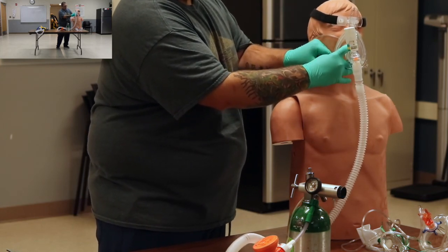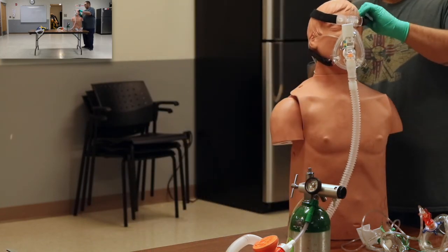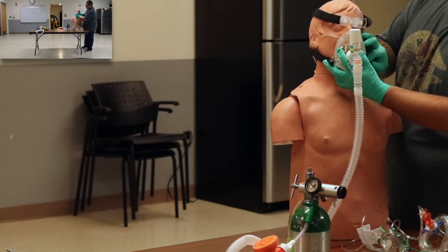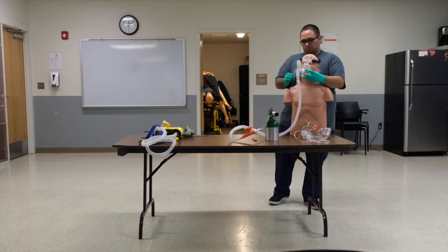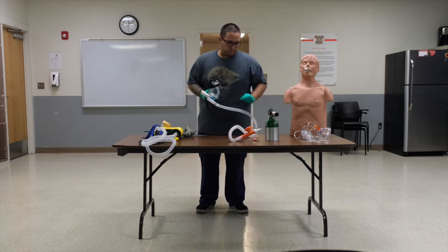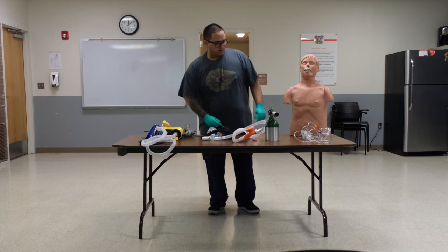The Pulmodyne is probably more similar to commercial BiPAPs, CPAPs for sleep apnea use. So if you have a patient that is used to being on BiPAP, this might be a little bit more comfort for them. And as always, anytime that you readjust your PEEP, we need to be reassessing our patients. We need to be reassessing these patients every 3 to 5 minutes.